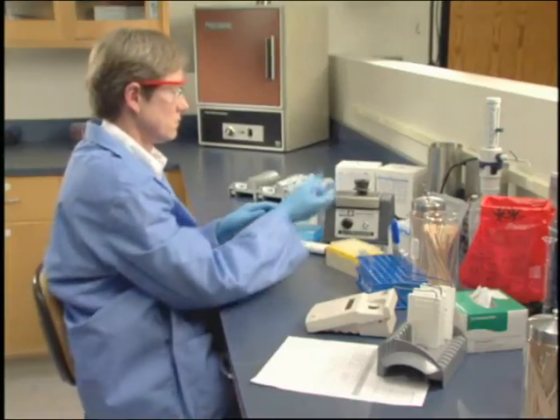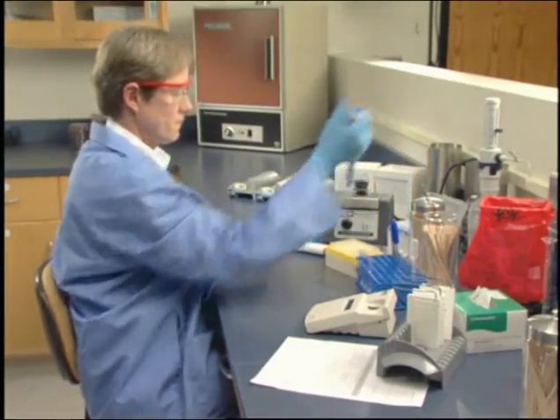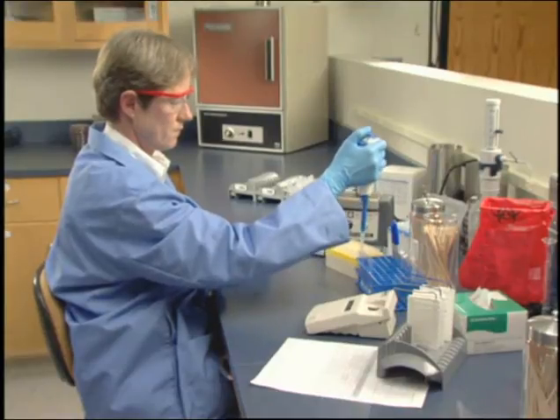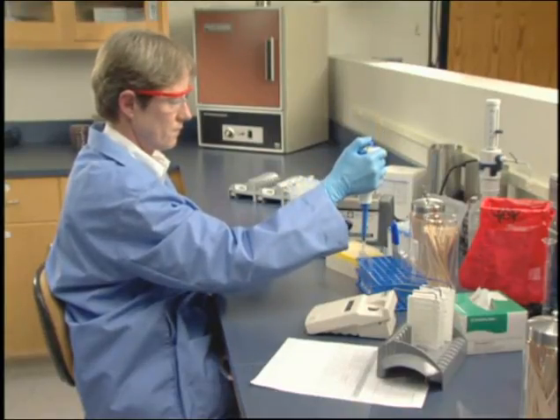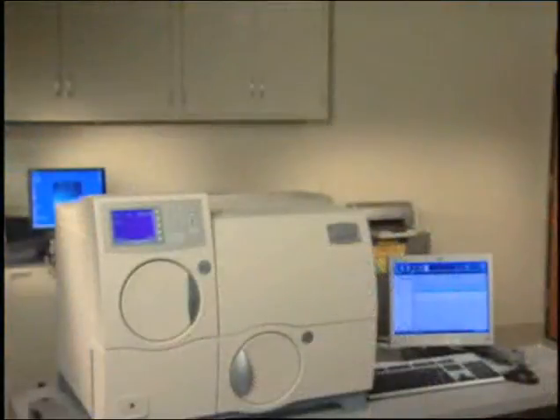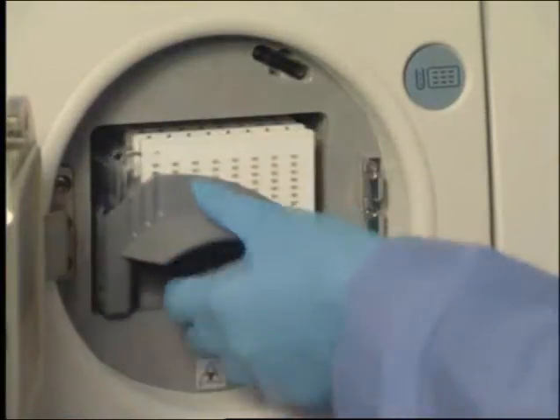When you use the setup test post entry or load and go method for managing a cassette, you will prepare the cassette with cards and inoculated suspensions, then fill the cards and load the cassette into the Vitek II Compact. This method may be best if your lab is busy or has a higher volume.